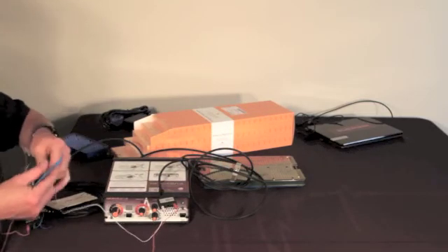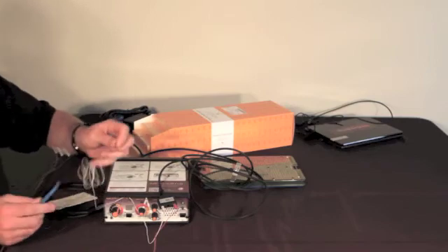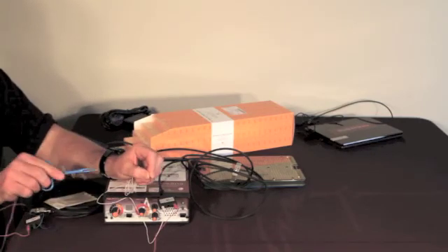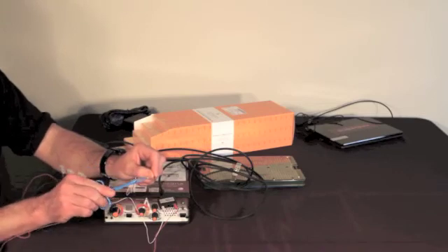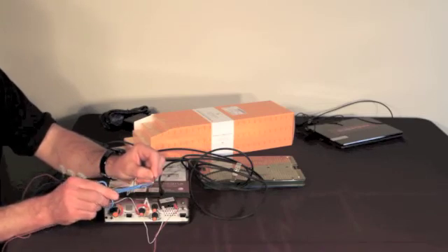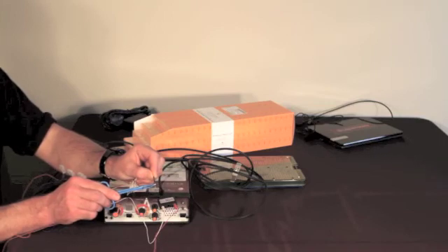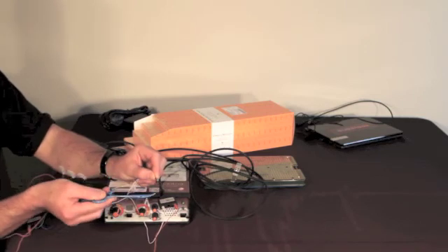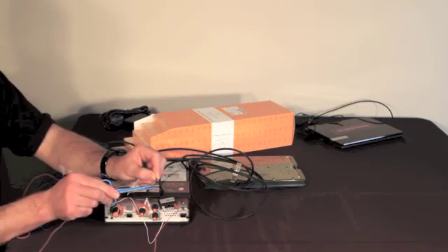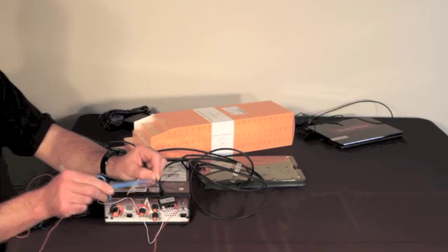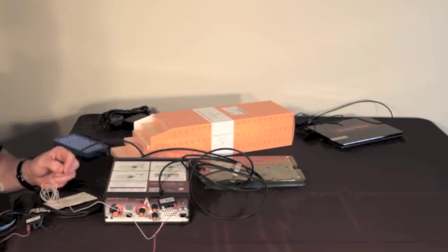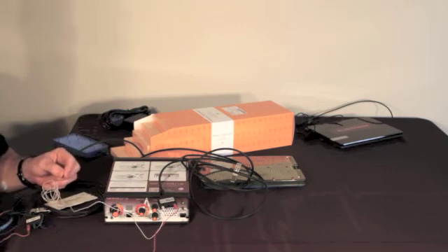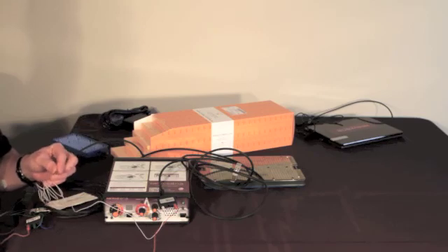If the needle return is in the patient and you touch them somewhere, the current is going to pass back to the needle. I'm going to short circuit the patient by just showing you a direct path. So that clicking, ticking sound verifies that your probe is delivering stimulation to the patient. With that done, you are now able to confirm for the doctor that the system is set up properly and the surgery may proceed.